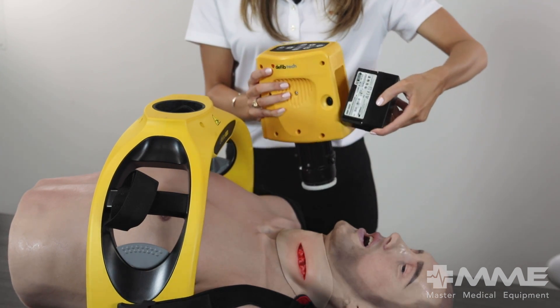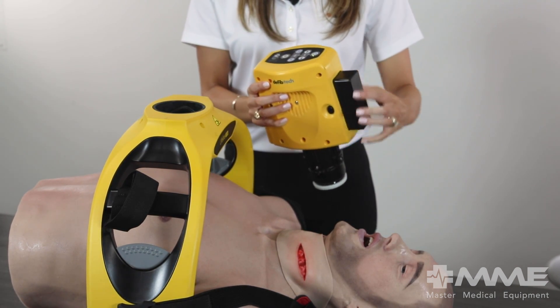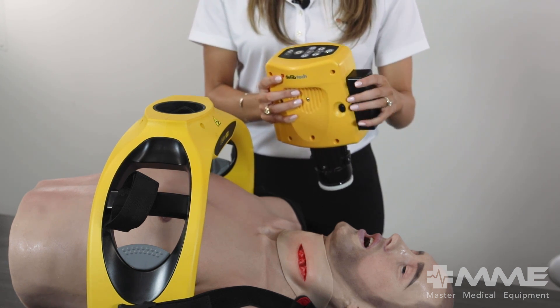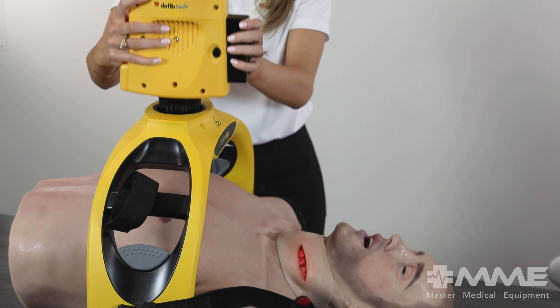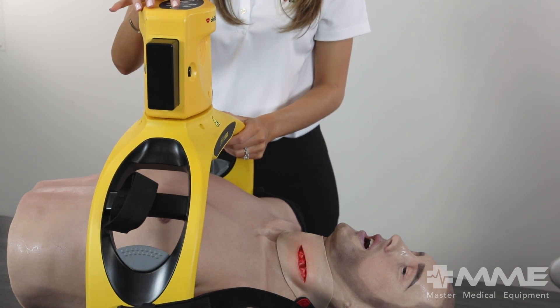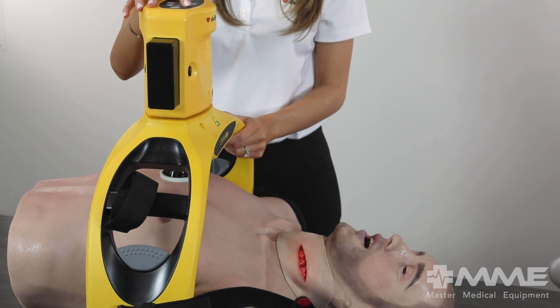This unit is tailor-made to fulfill any protocols for various medical requirements and issues. The unit provides continuous CPR care or pauses for breath, whichever the healthcare professional deems necessary. To ensure the protocol is followed, the device also chirps and flashes an LED between compressions to allow for breaths.